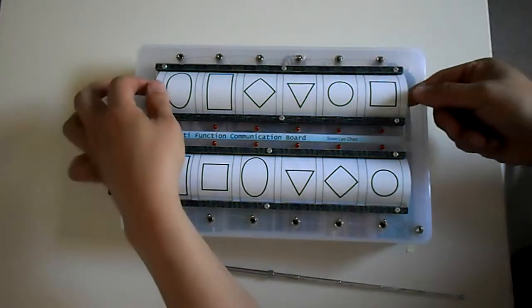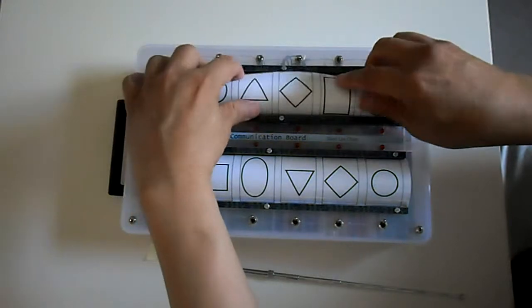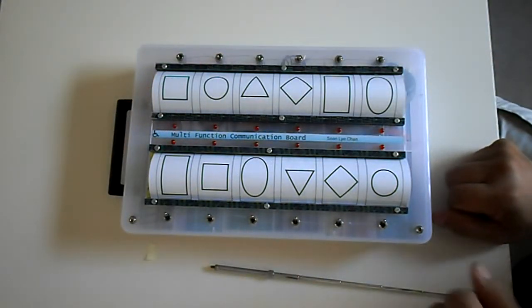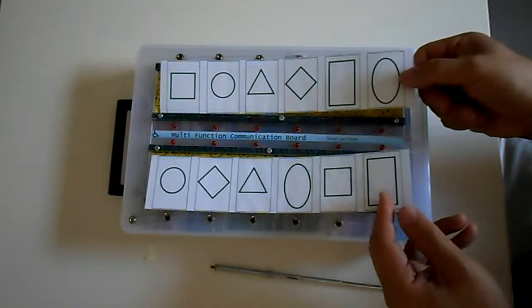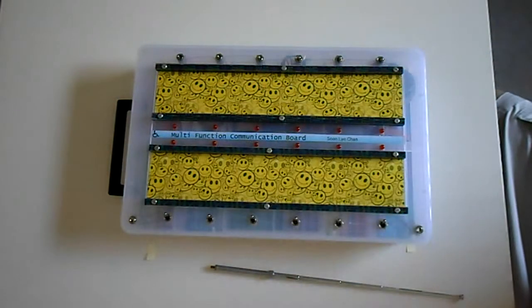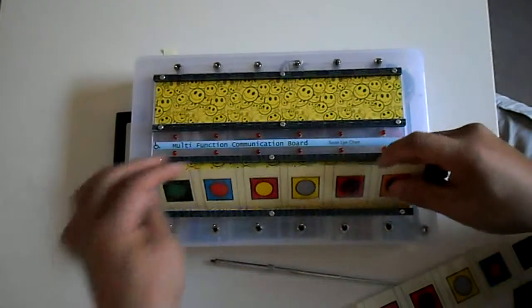But notice, just by lifting that and turning around, it has changed the order, and therefore the child cannot just memorize the position. So in short, by doing that, there are 4 permutations in just these 2 examples. So we increase the complexity a little bit more, a bit more brain teasers.